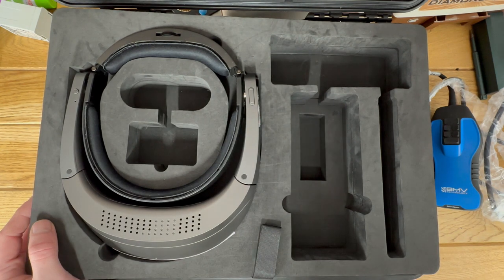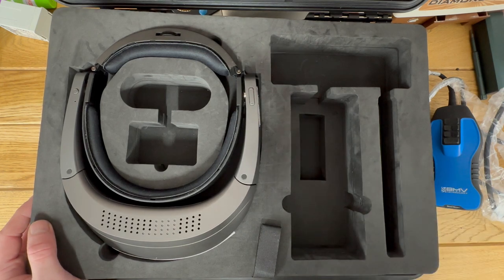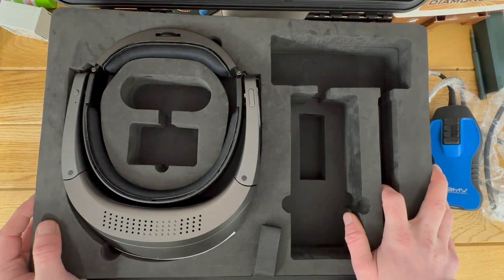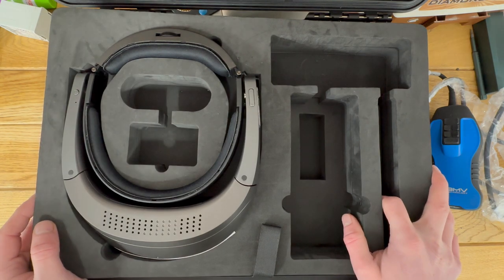You can just turn it on and start scanning — you don't need anything extra. It's simple: turn on and it will automatically connect to the device and away you go. However, if you are looking to get more out of the device, we've already included extras, so let's have a quick look at what you actually get when you buy these devices.